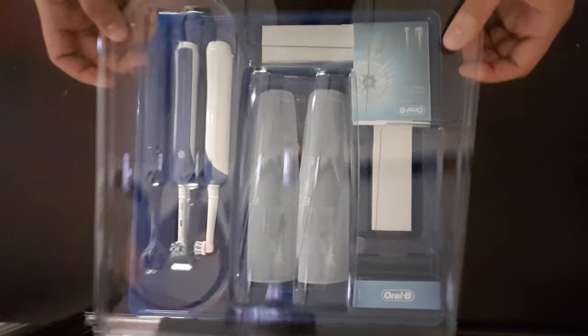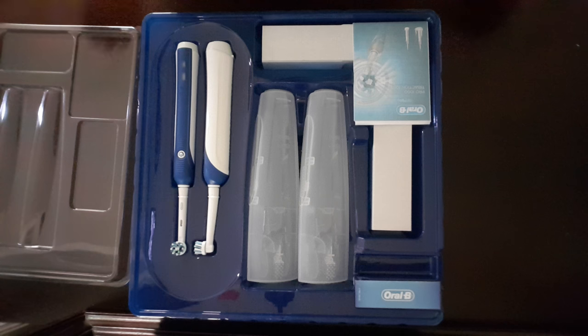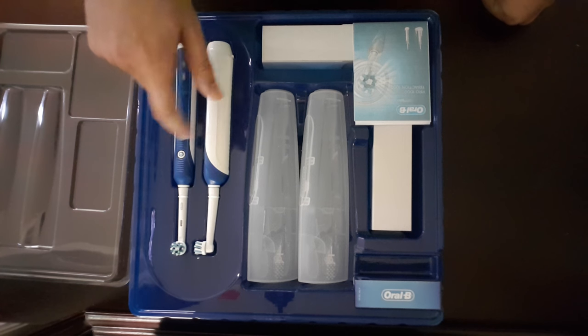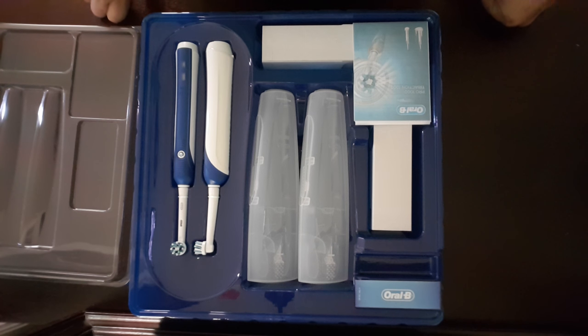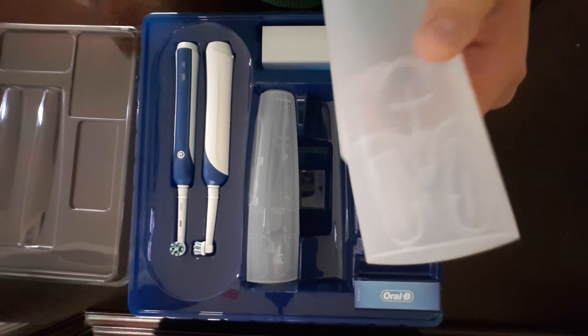So this aside, we get this plastic cover and you get two toothbrushes with their two packages.